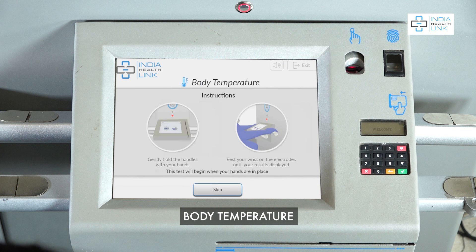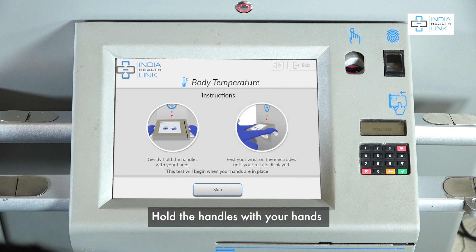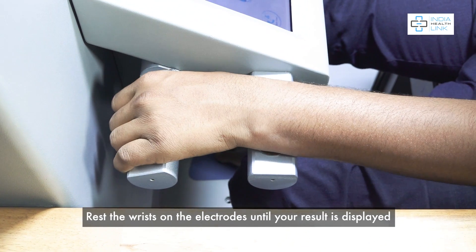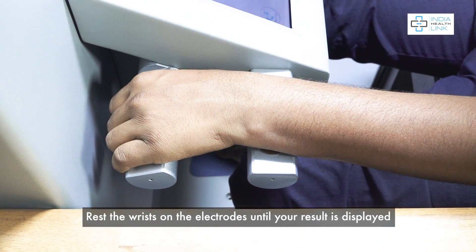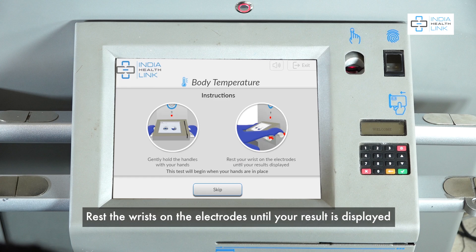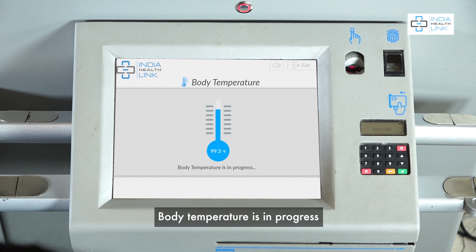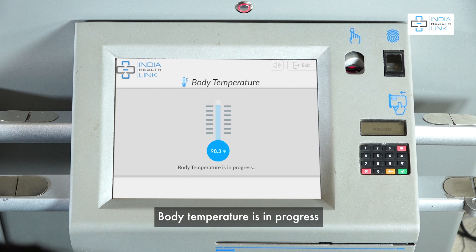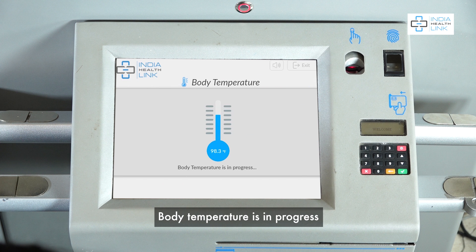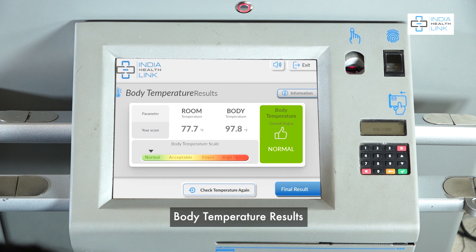Body temperature test. Hold the handles with your hands and rest your wrists on their electrodes until your result is displayed. Body temperature test is in progress. View body temperature results.